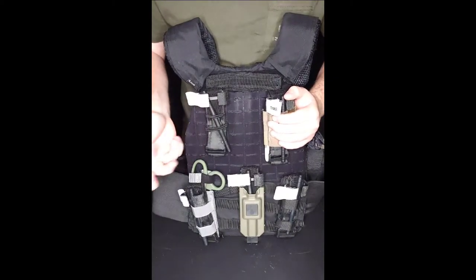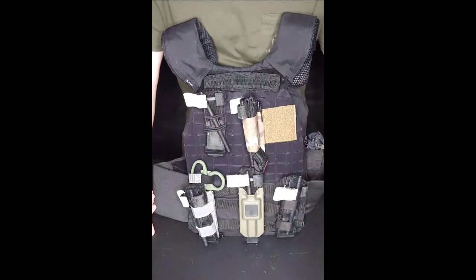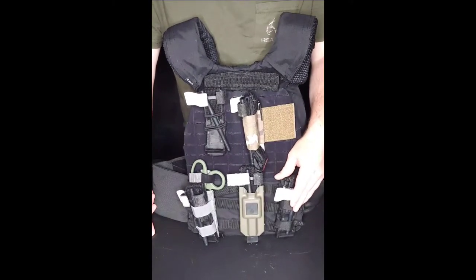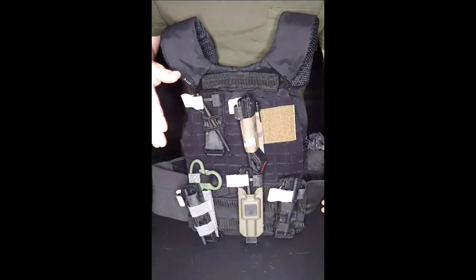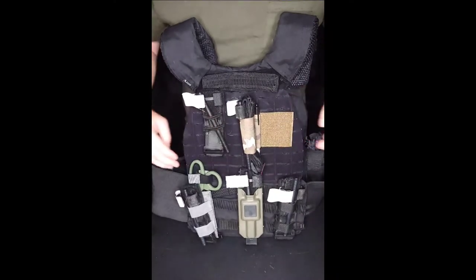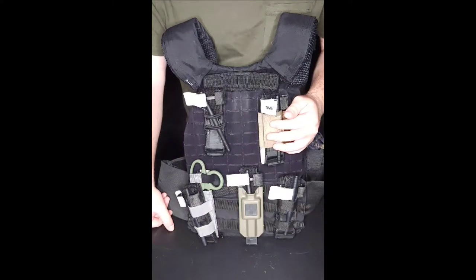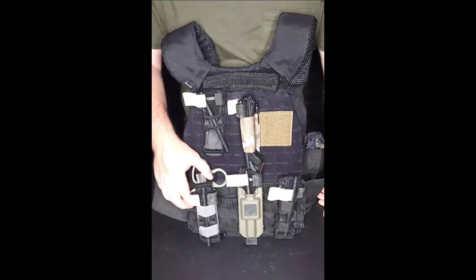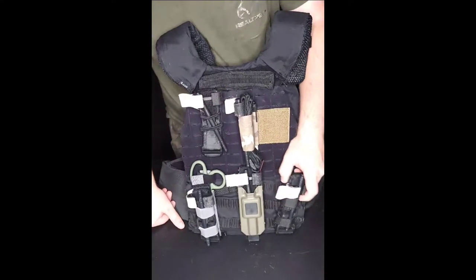The elastic option is definitely secure unless your elastic snaps — if you have brand new elastics you shouldn't worry, but if they're getting old and cracking from sunlight, swap them out. For versatility — how many platforms can you attach these to — if your plate carrier has MOLLE then basically all the MOLLE-based ones will work. If you have a slick carrier then you want the velcro one, and most cummerbunds are velcro so that one can go on nearly every plate carrier. A lot of people are moving away from MOLLE to velcro setups, so keep that in mind.